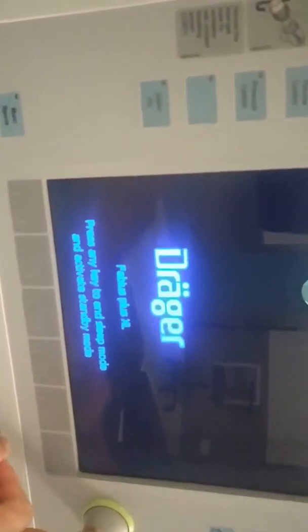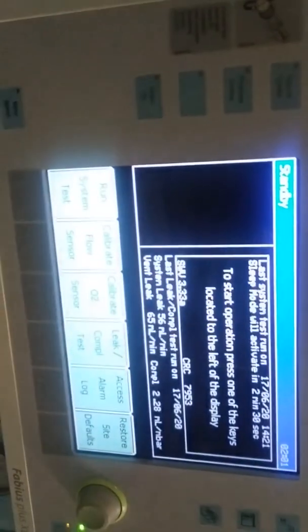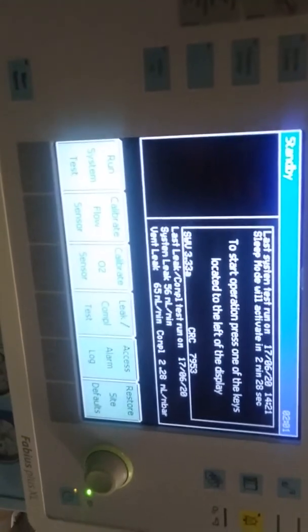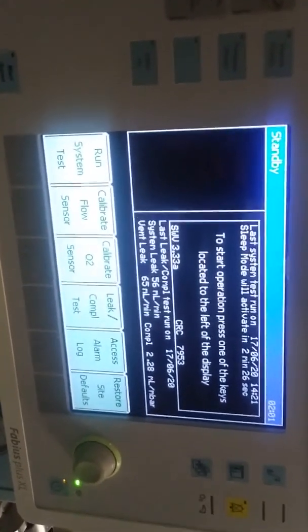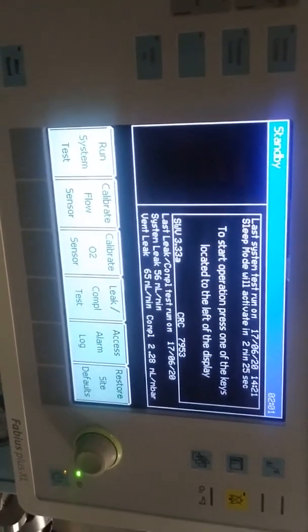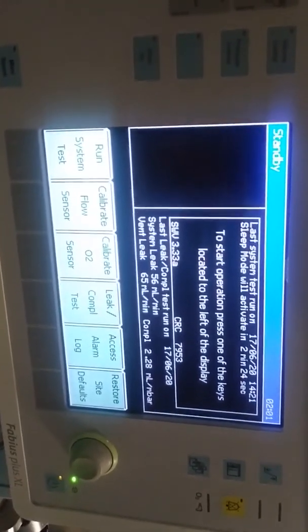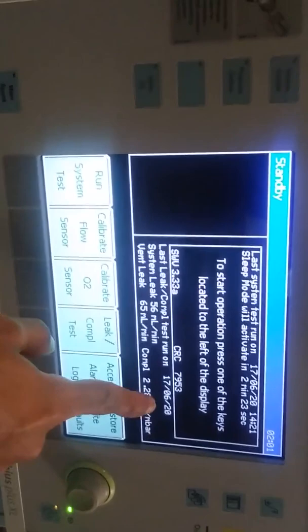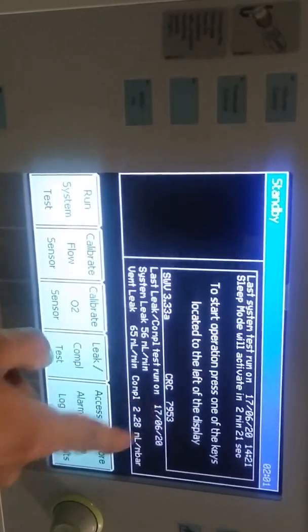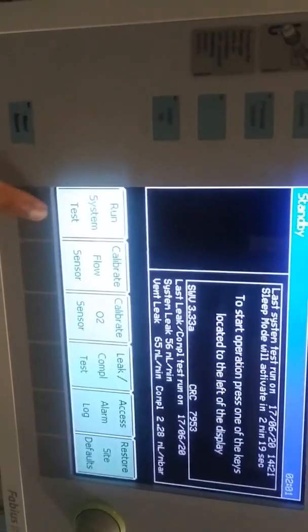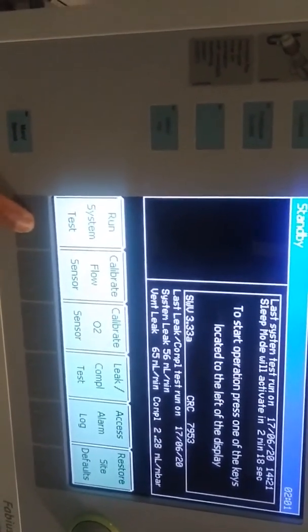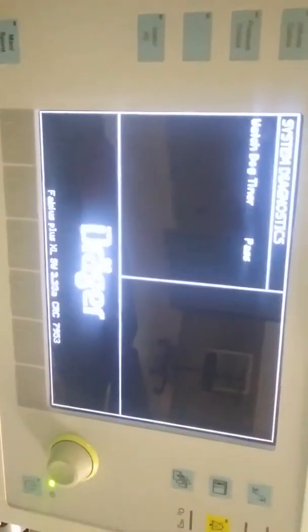We should calibrate every day before case starting, after circuit changing, and after carbon dioxide absorbent changing. Next important thing is always keep Ambu bag with reservoir and emergency oxygen cylinder on standby. After switched on we can get this display. We can check when the last calibration was done, is it failed or passed, last leak test status. Overall we can know that the workstation is ready to use or not ready.